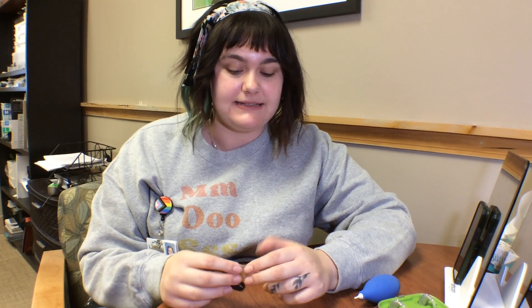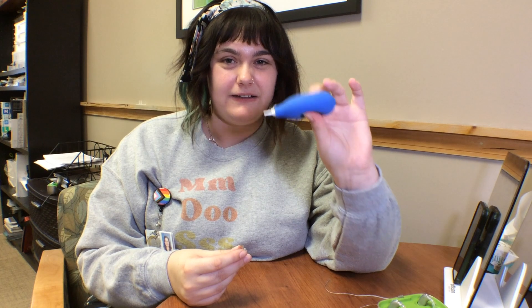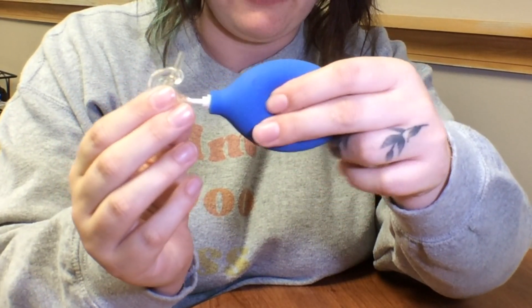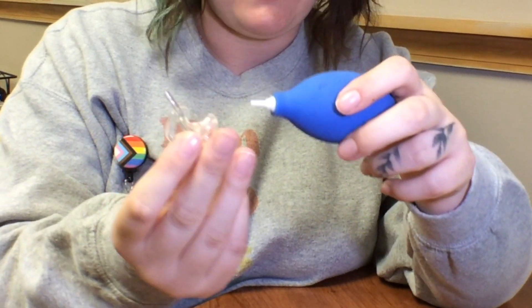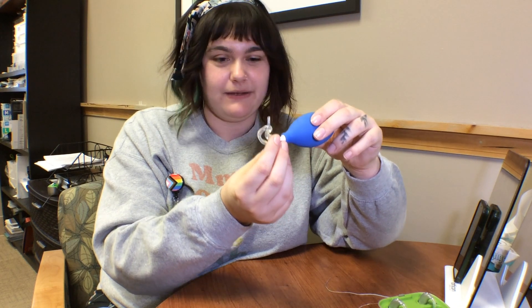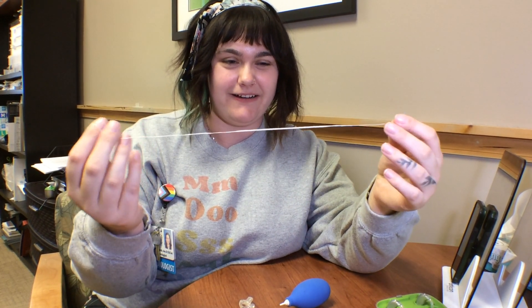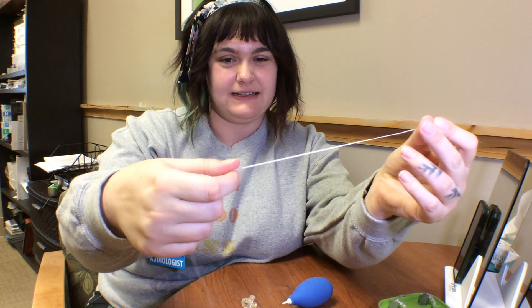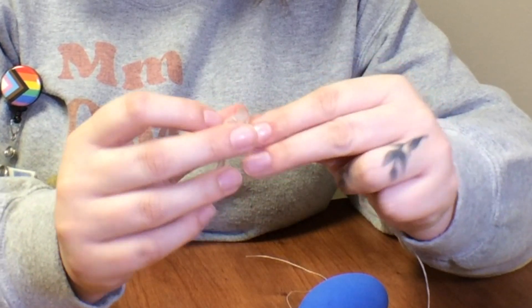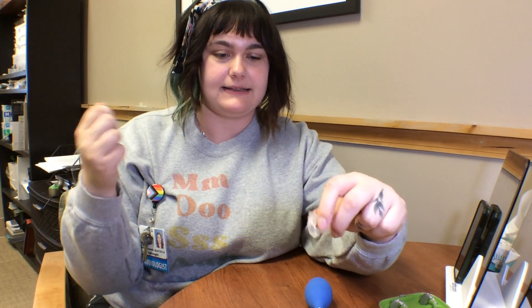The other thing you might find is debris down inside the ear mold. Take the tubing off the tone hook — some kits come with a little air blower. Get it connected right into the space you're trying to clear and just squeeze until the wax comes out. You can do that for the tubing that connects into the tone hook and also for the vent if the ear mold has a vent. You can also use an ear mold tubing cleaner, which is essentially a little string with a thick portion on it. Thread that piece right through the ear mold venting area to quickly wick out any moisture, wax, or debris.